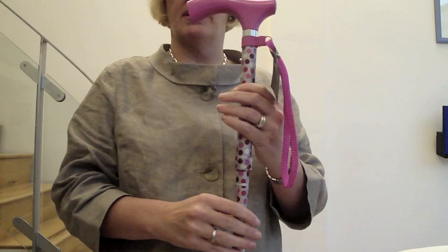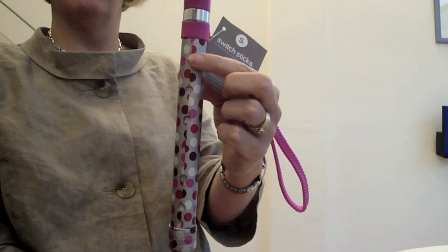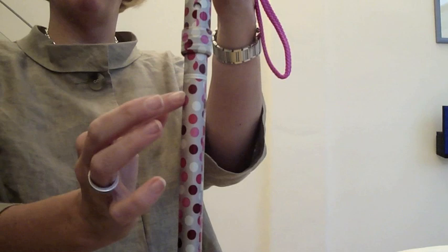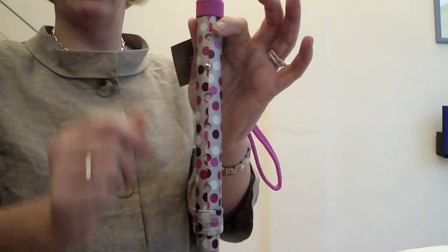Next thing is to alter the height. This safety locking band is really, really important. To alter the height you basically give it a half turn. Once you've loosened that, you can then push in the pin and pull the stick down. Once you've pushed that pin in, you go just below the safety locking band but above the first section and pull the stick. You can see the pin has gone from the first hole to the second hole. They're in one inch increments, adjusting from 32 to 37 inches, and they do fit most people.